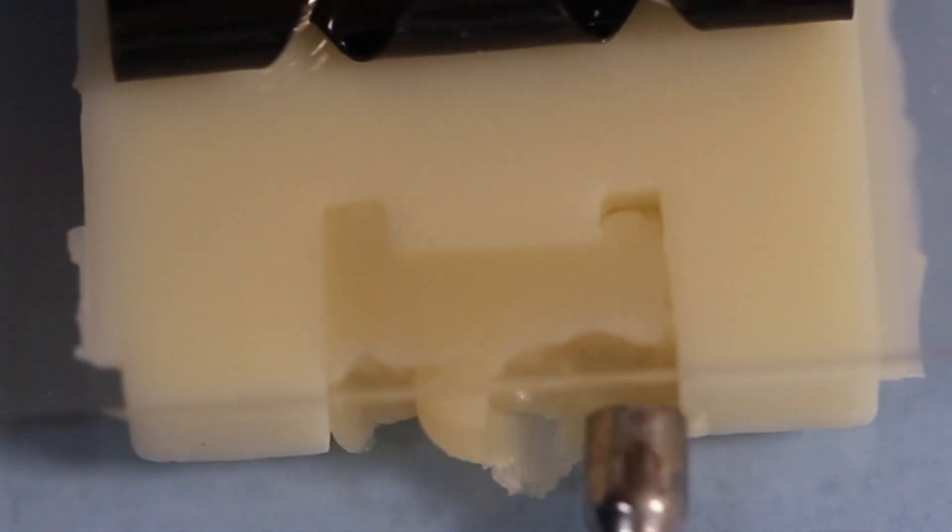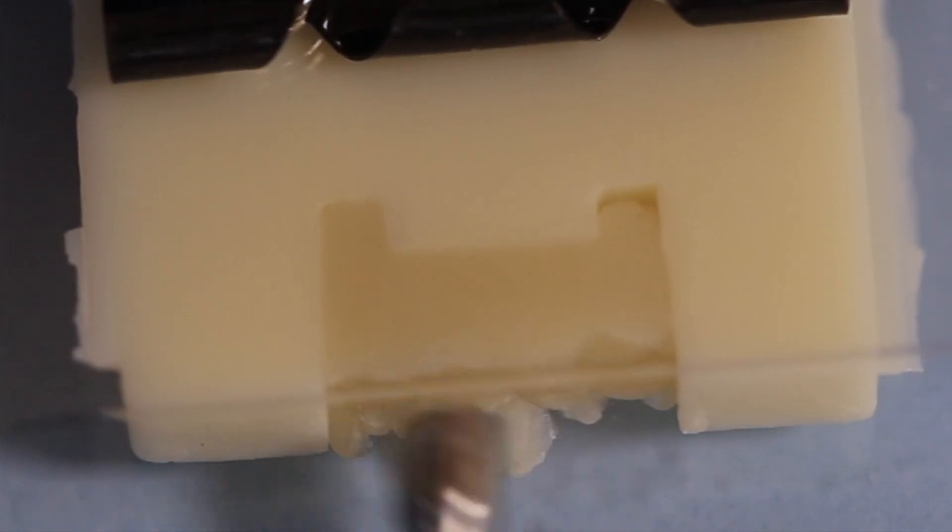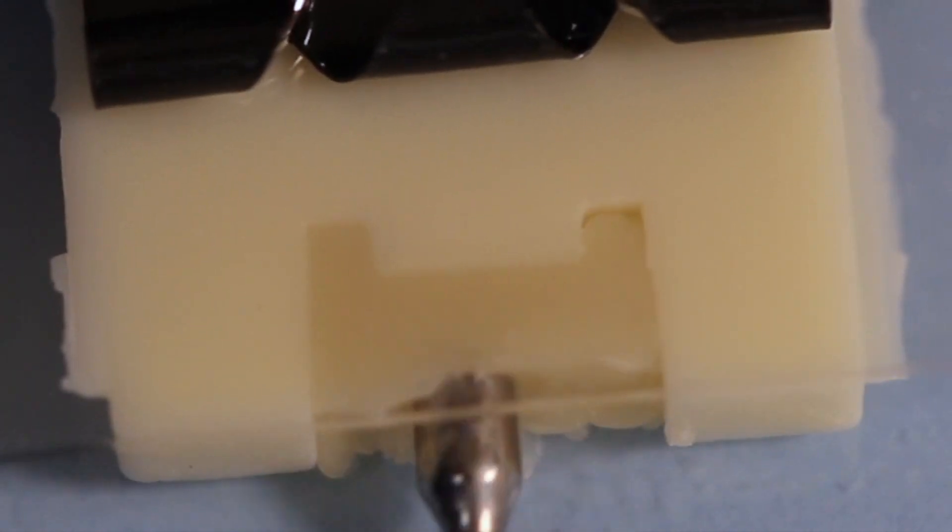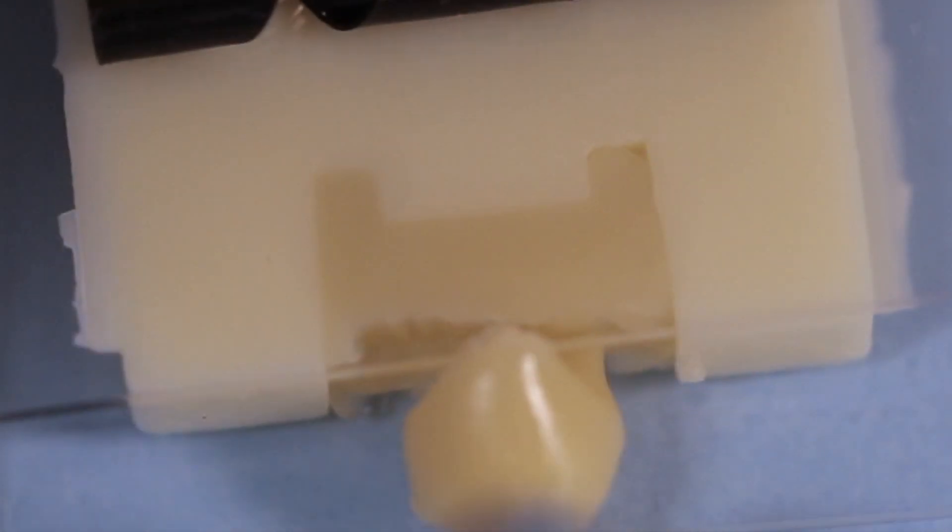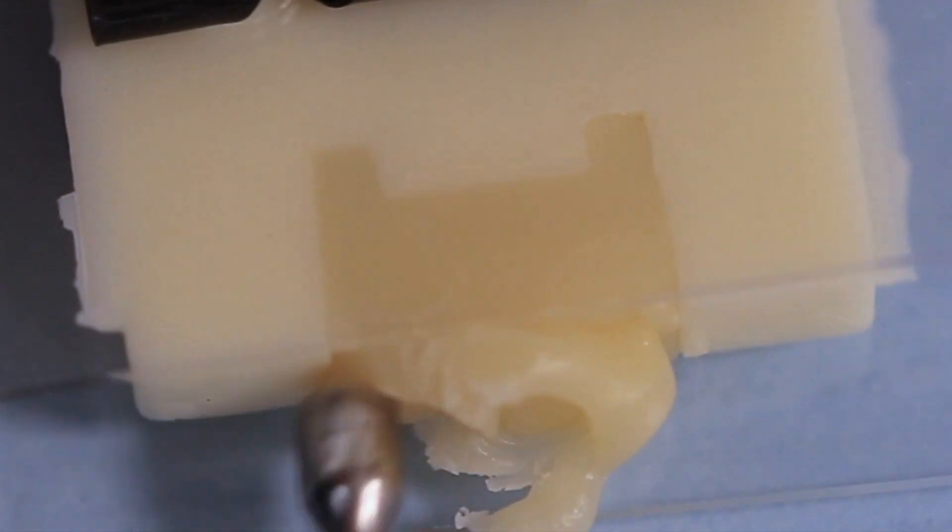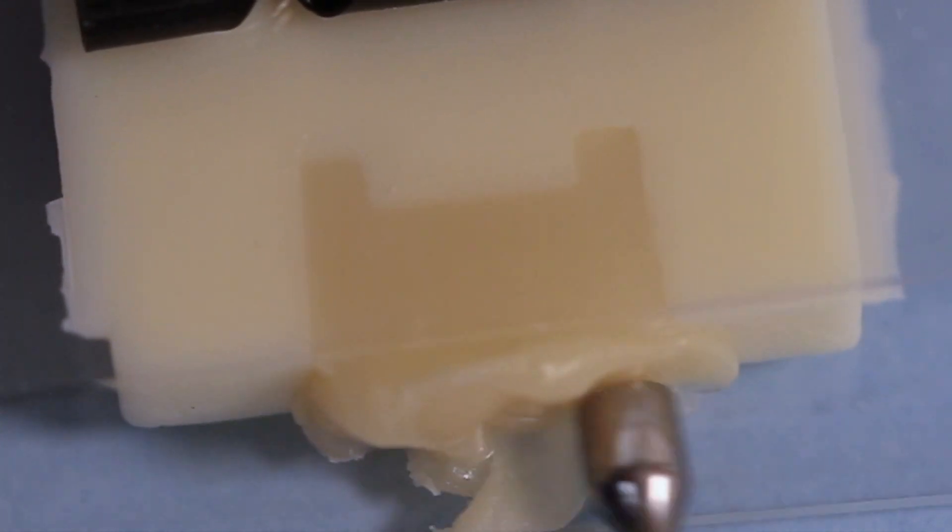We see that the composite that went into the first box is well adapted, but the composite that went into the second box was not quite so well adapted, and there's a small void in the corner.